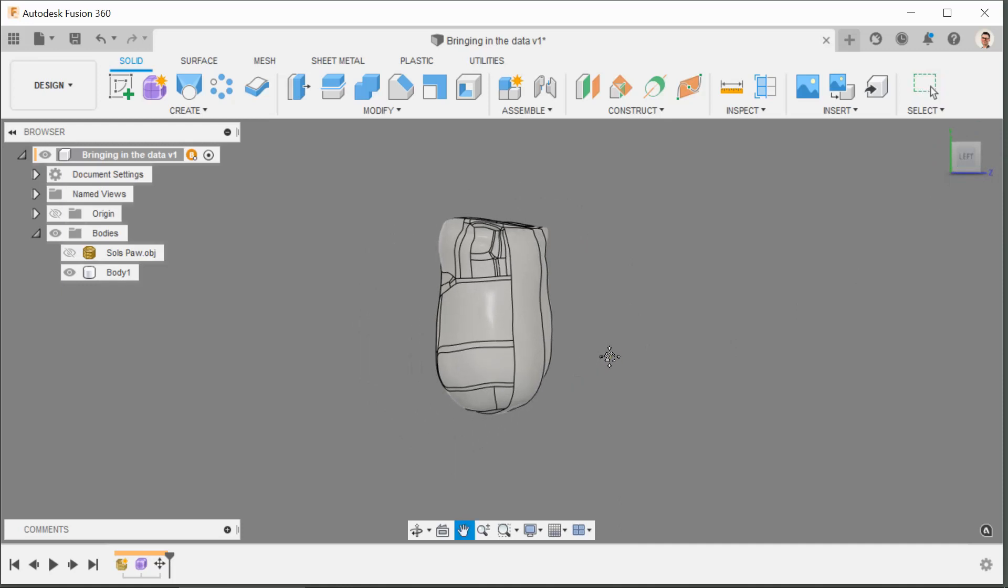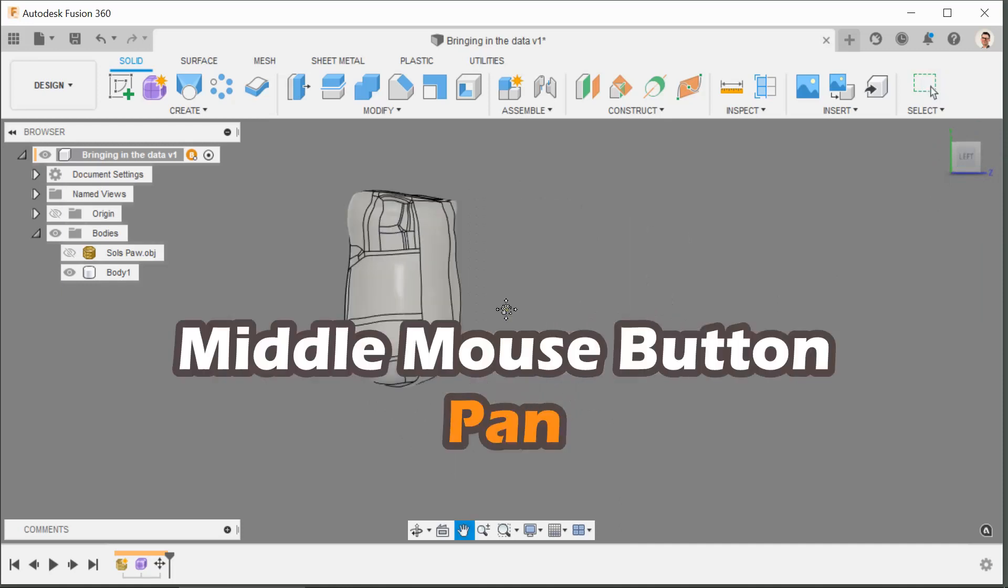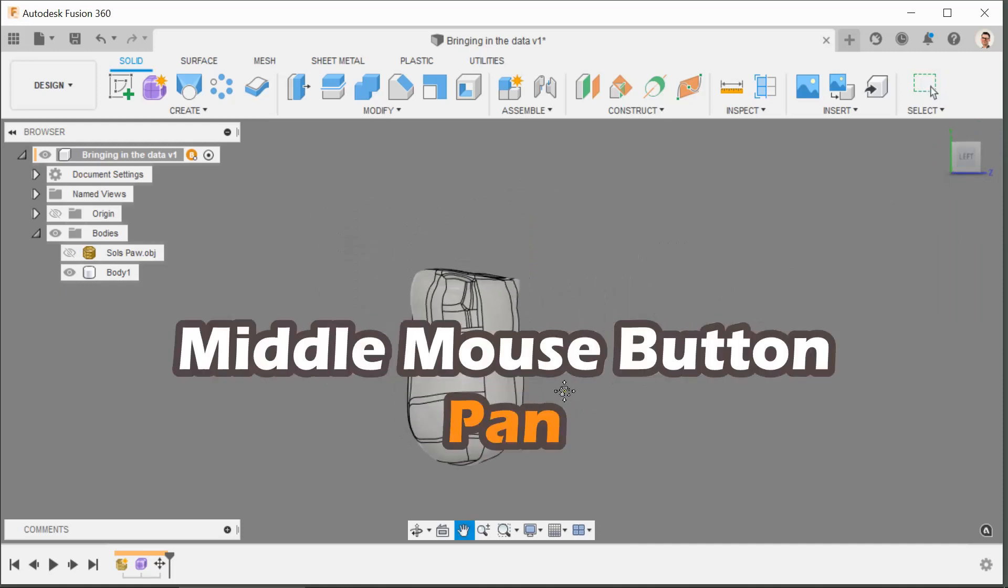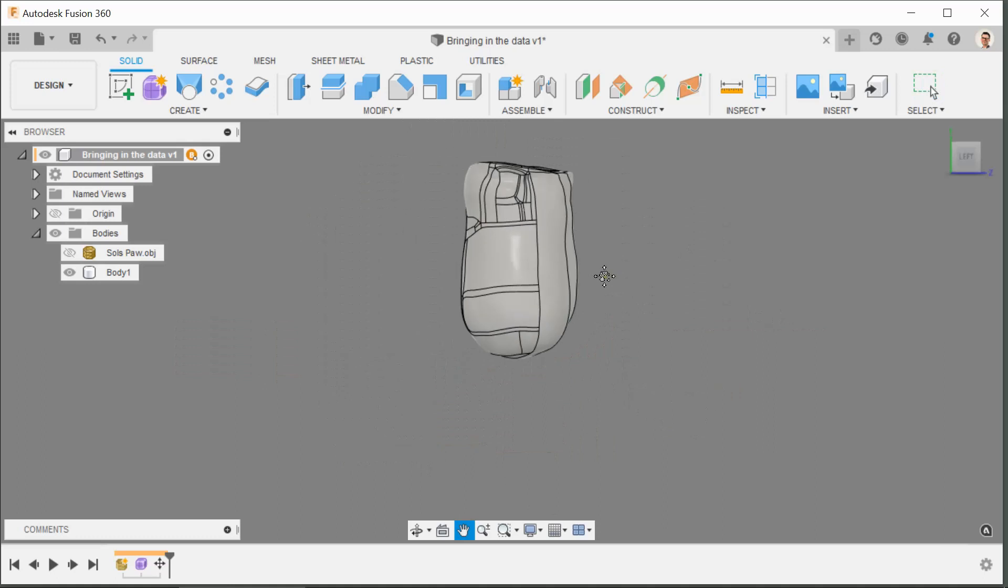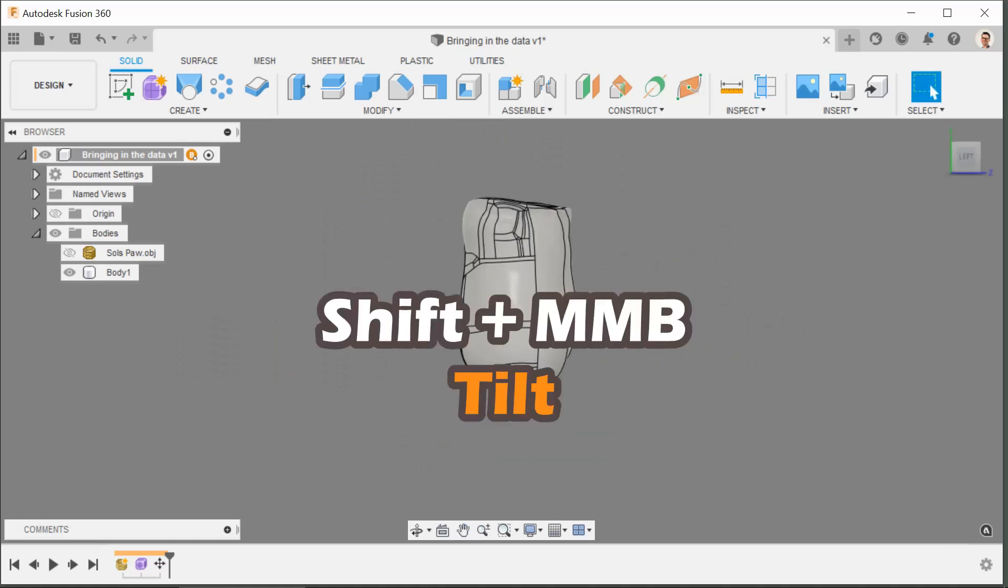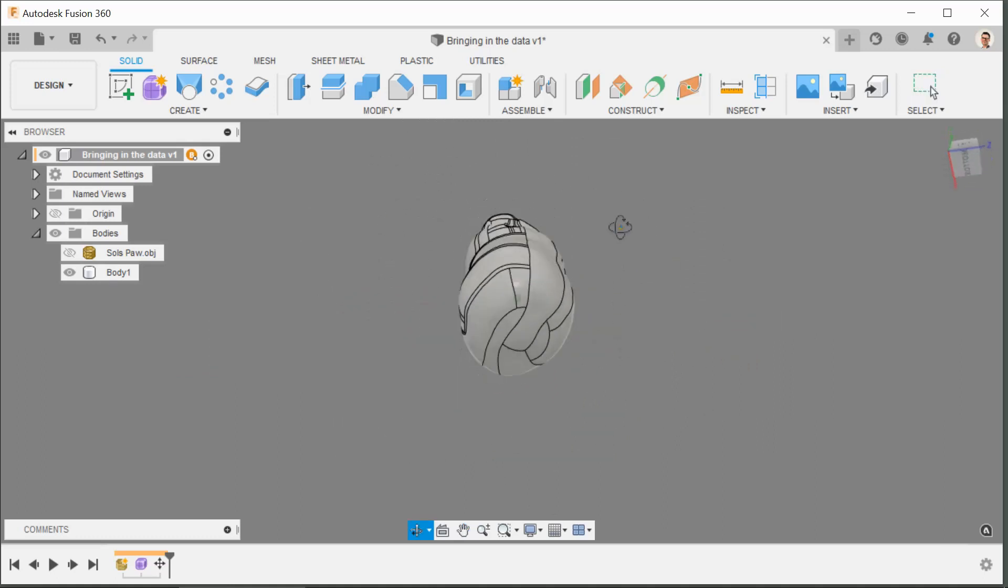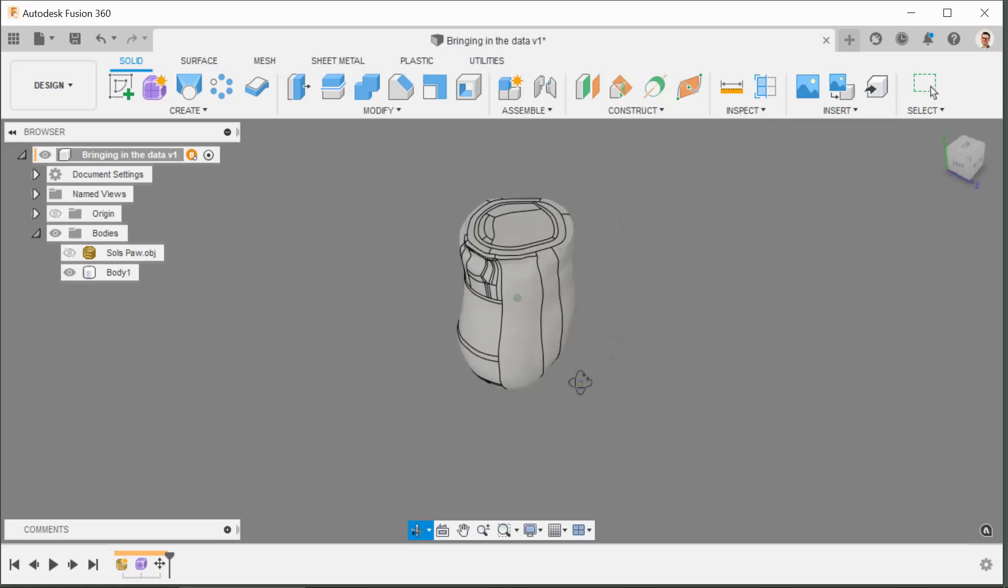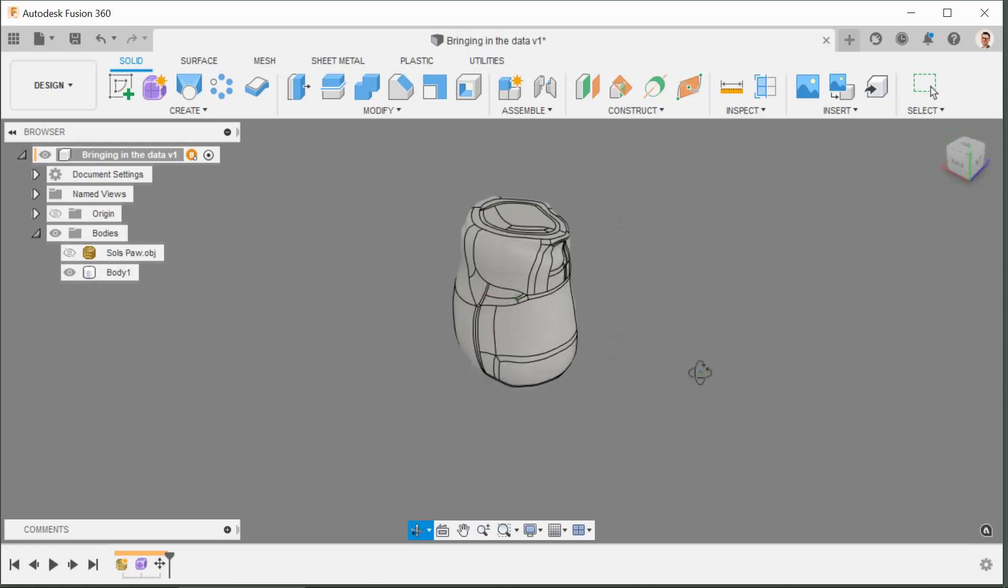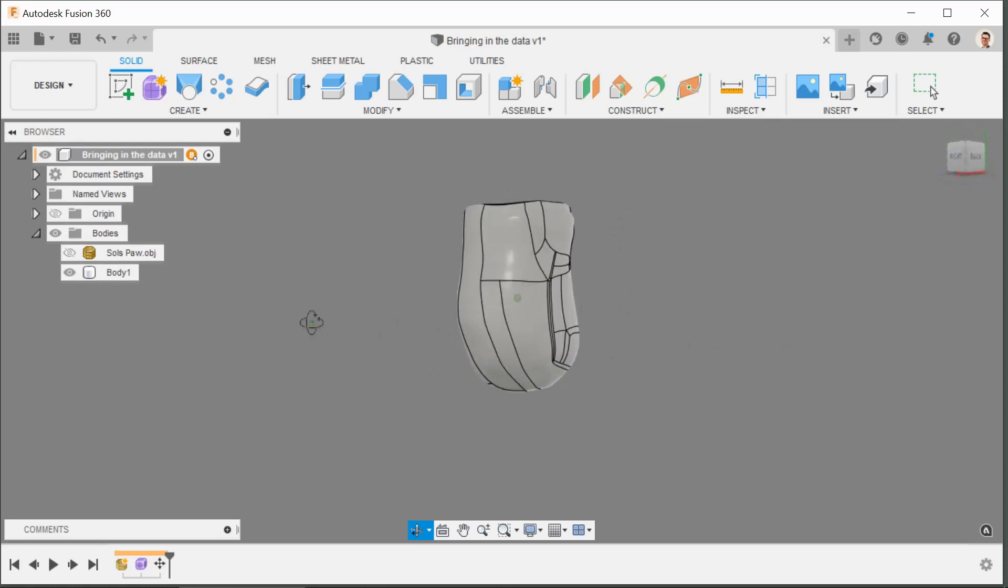Similarly you can use the mouse and keyboard, so if you press the middle mouse button you can pan. Holding shift and middle mouse button allows you to pan and tilt, you can pan from left to right which rotates the object.